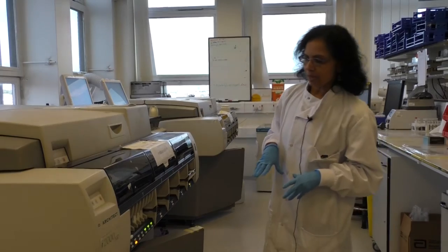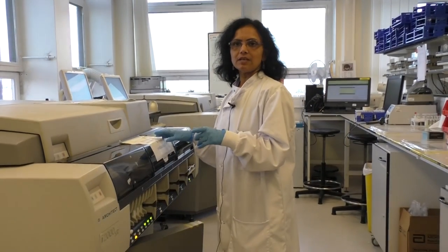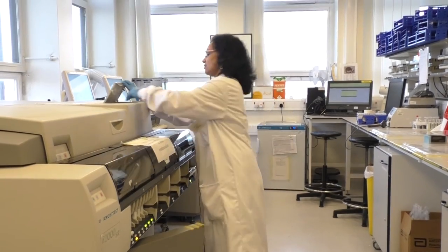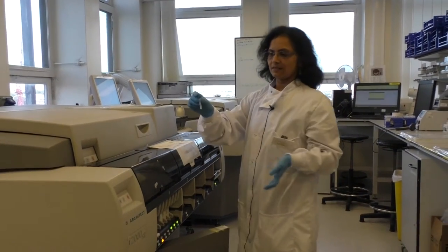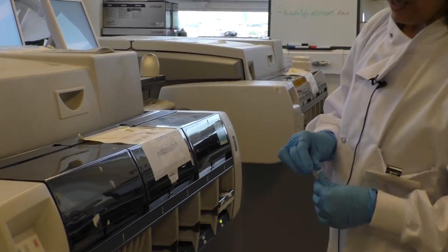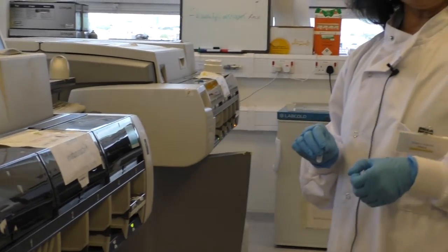Basically, what happens is that the machine samples it in a cuvette like this, and antibody to C3 and C4 will be added to that sample.